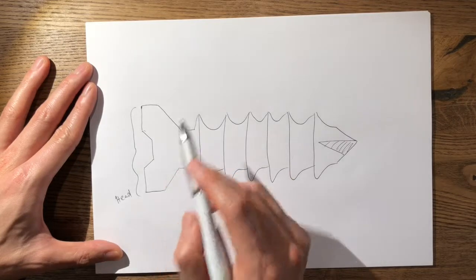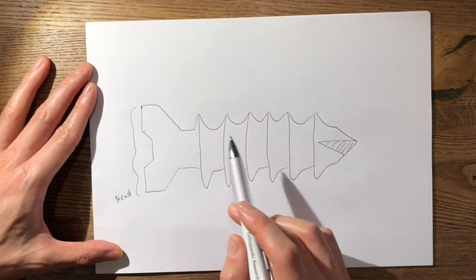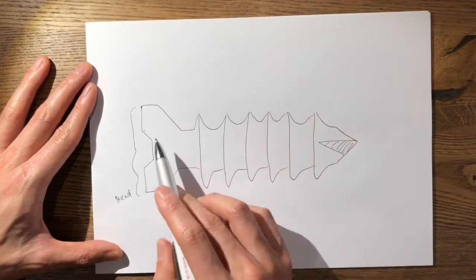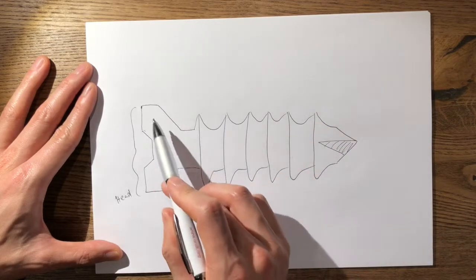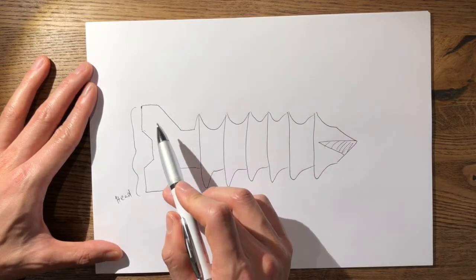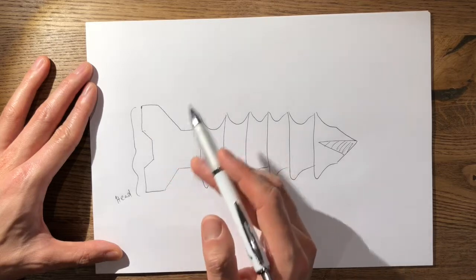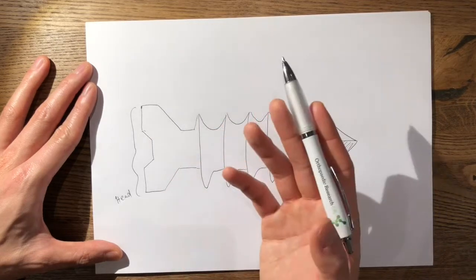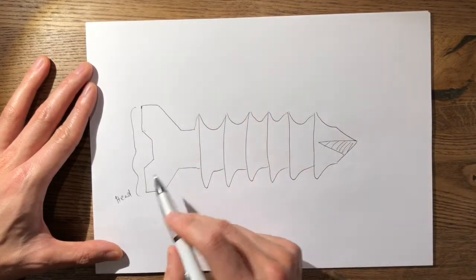The second function is it halts or arrests the forward motion of the screw as the head engages into the cortical bone or indeed a plate. So those are the two functions of the head.